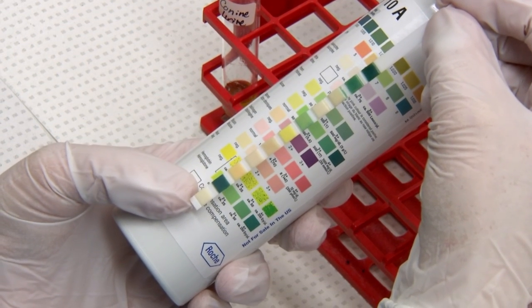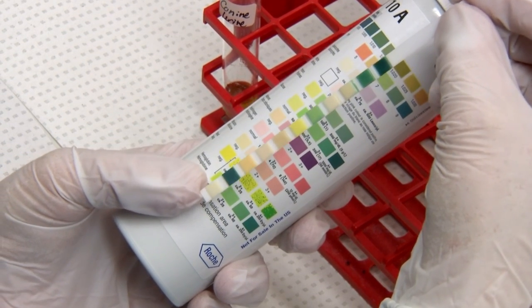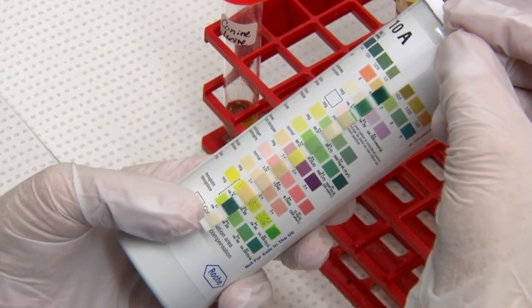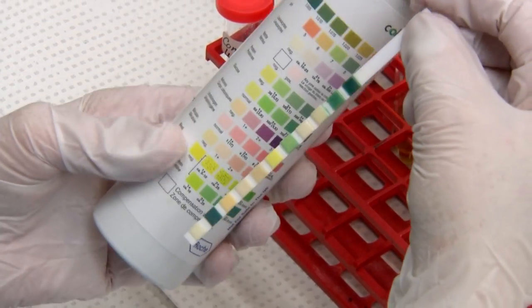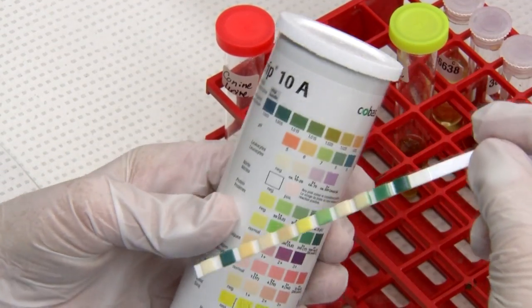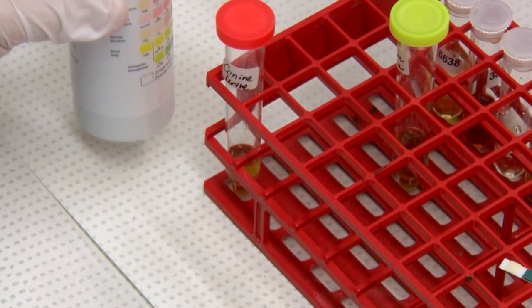So that's your strip and how to read it — you read all your reactions within 120 seconds. After you're done with your strip and appearance assessment, you want to centrifuge your urine at 1500 RPMs for five minutes.